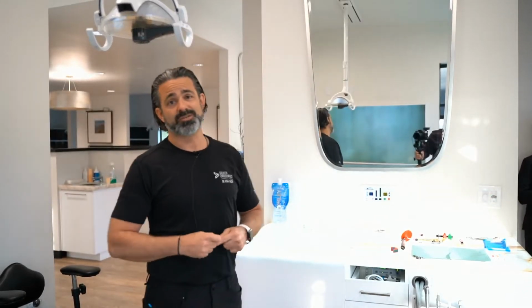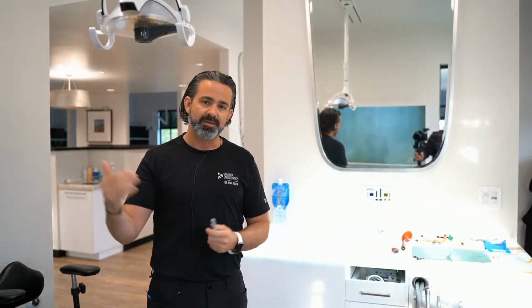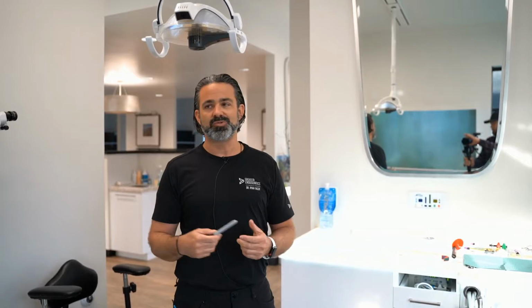So, as I was saying, I'm a practicing endodontist. I've been practicing since 2005. My company's Greater Endodontics. This is my actual operatory, and I'm going to walk you around the room and go over how I use a microscope, with the tips and tricks I've learned, some positioning things, some parfocaling tricks, and really introduce you to how to be fast and efficient with this microscope.